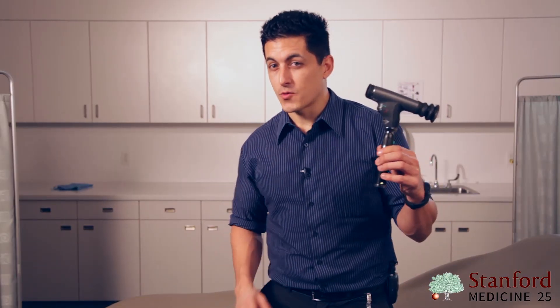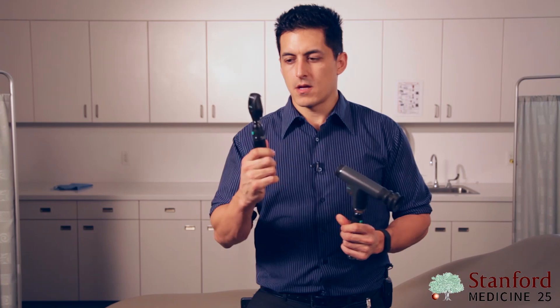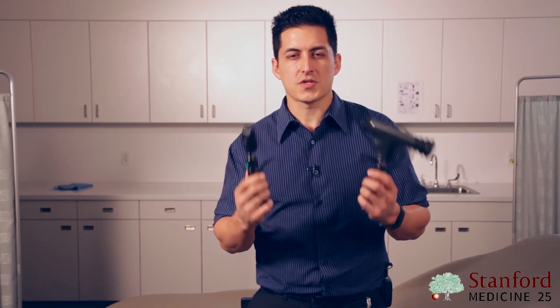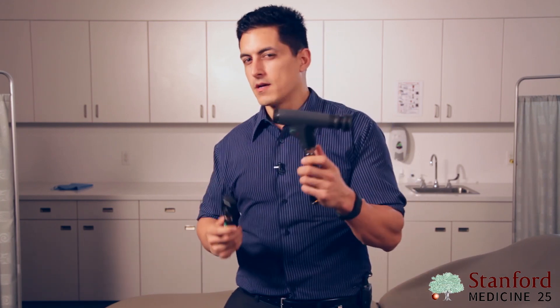Before we can do anything else, we have to talk about the equipment. Usually we use direct ophthalmoscopes. Indirect ophthalmoscopes are the type of gear that the eye specialists wear on their head. These direct ophthalmoscopes come in a couple different forms, and two of the most common ones I'm holding in my hands. You have the traditional one here and also the panoptic.